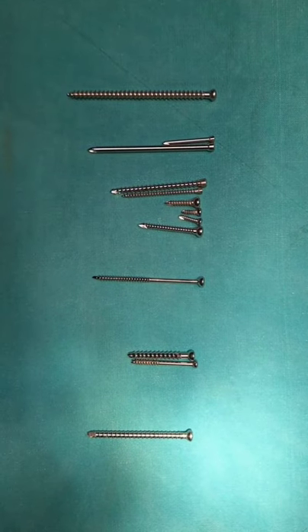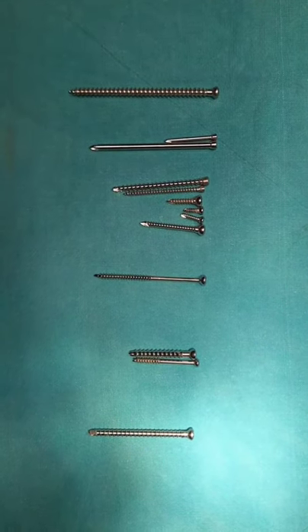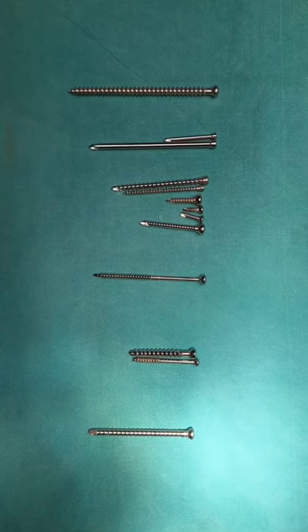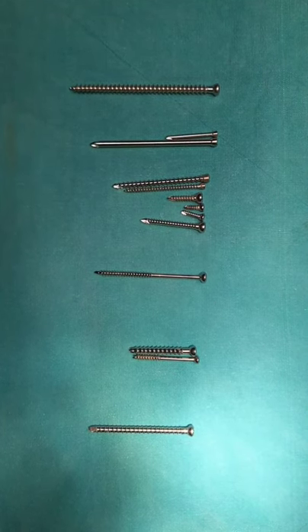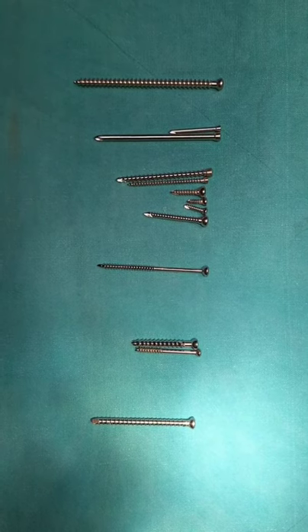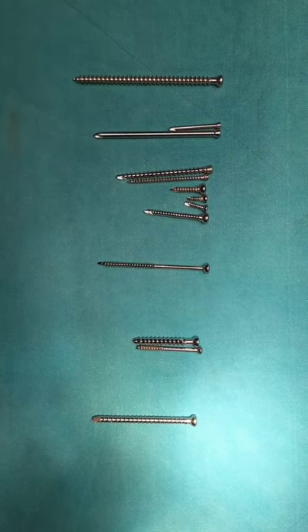Welcome to this video lecture. My name is Dr. Darshan Patel, first resident doctor in the Department of Orthopedics, Adani Institute. I will be discussing the anatomy of screws, types of screws, and screws which are routinely used in orthopedics.